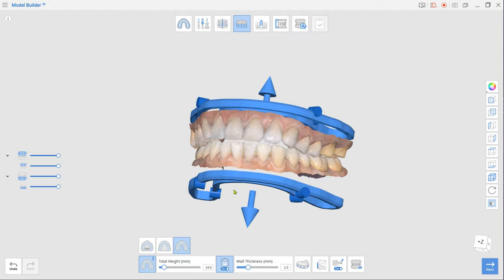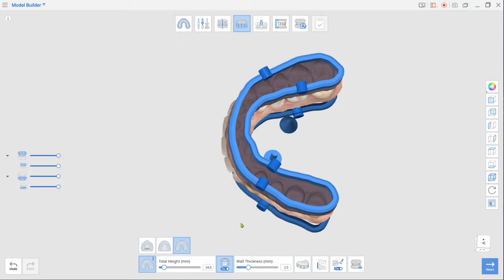Create drain holes and ensure they are not placed near your working dies. Adding drain holes will prevent blowouts caused by cupping.